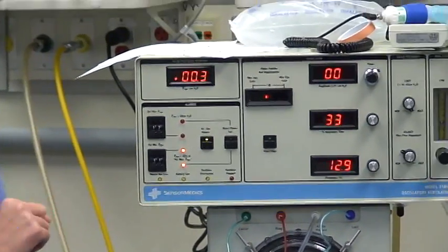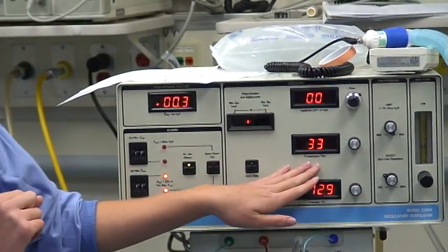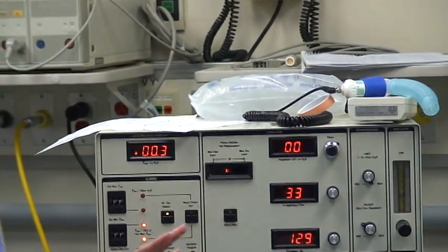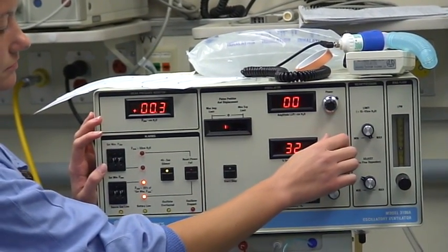The next thing you can set is the inspiratory time. It's usually set around 33% but it can be adjusted by moving the knob.